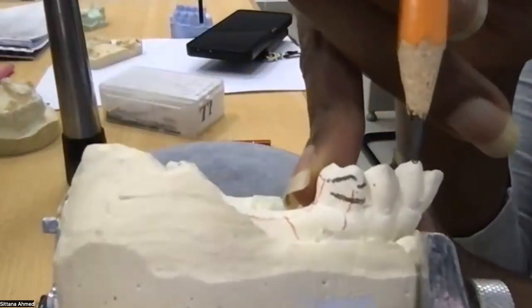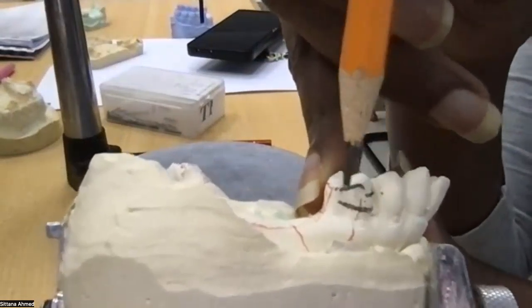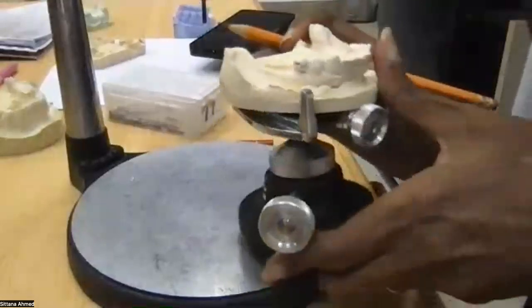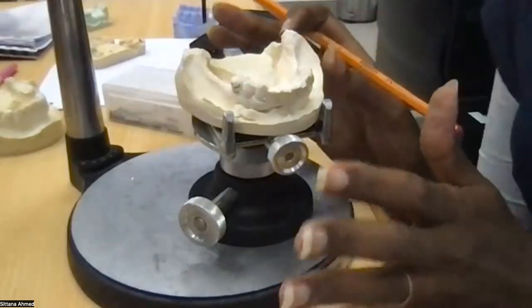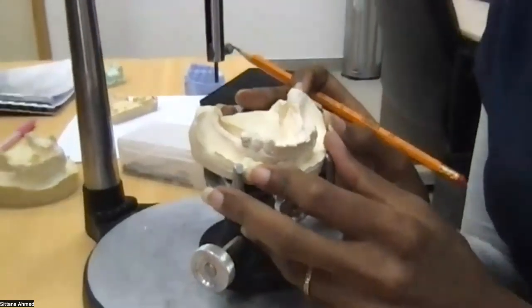So what should I do? One of the easiest fixes is just add composite. It will raise my survey line. This way, I don't need to change anything and I'm done surveying. That's the whole point of doing surveying. I think now it's much easier and you can understand.